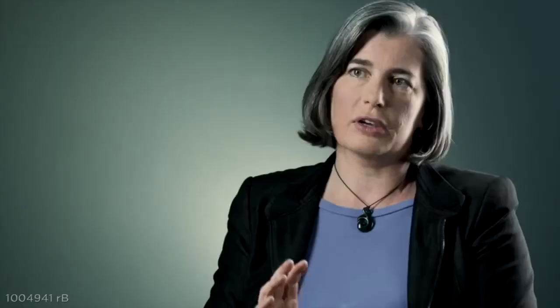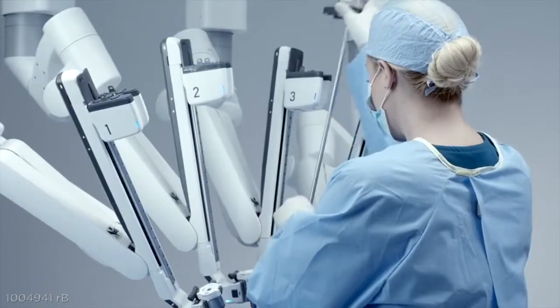With this new architecture, you can put the scope in any one of the arms and it gives you a lot more flexibility in setup.